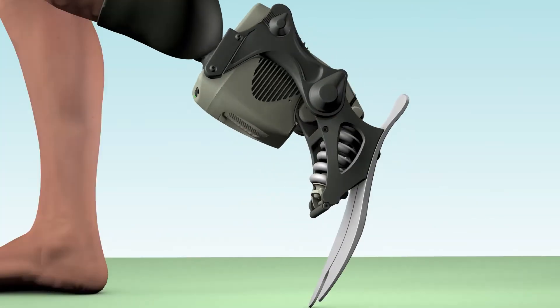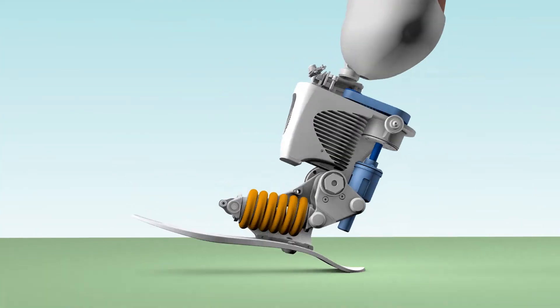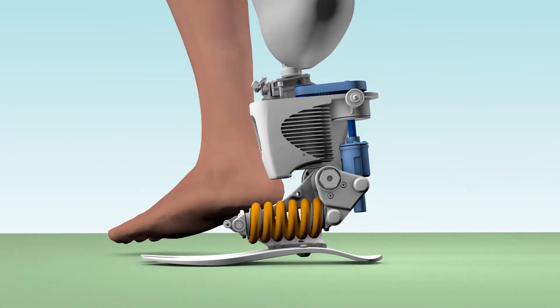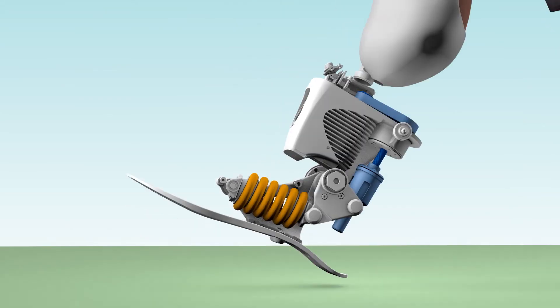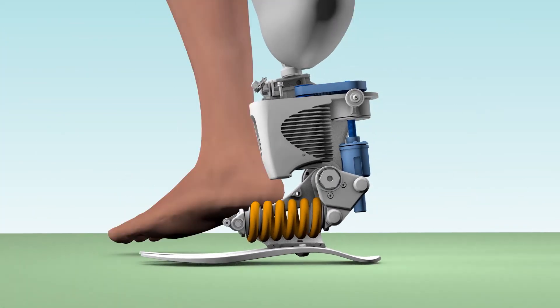It's a tension spring. We have mechanical limits inside the system so that you can calculate the life of a spring fairly accurately — we've basically put mechanical limits in place so we always know what the life of the spring is, even when you're running on it.